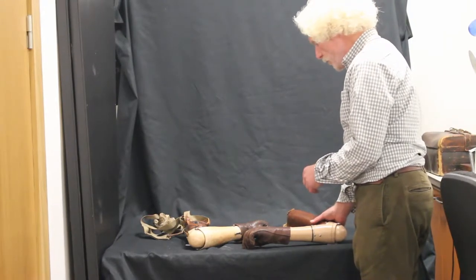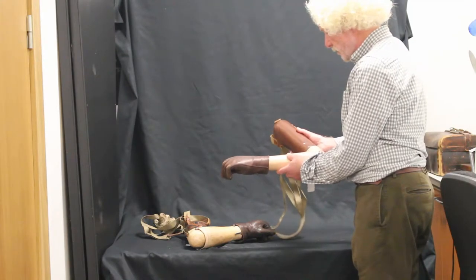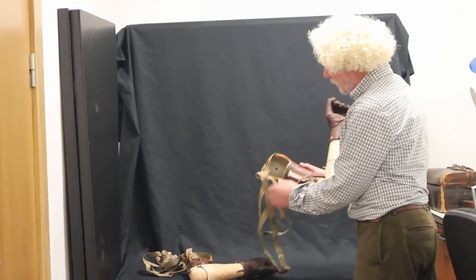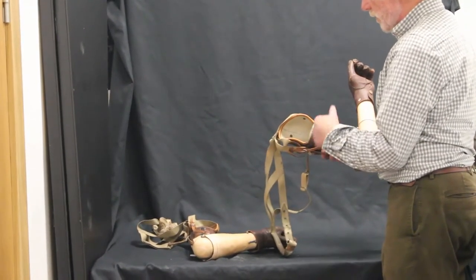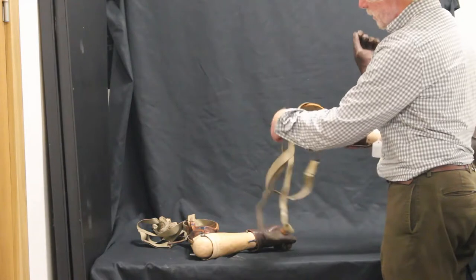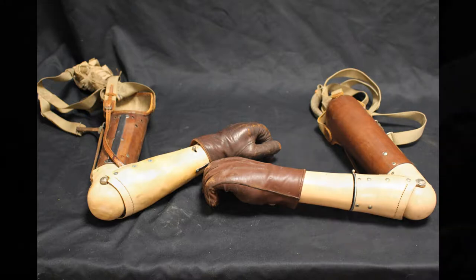From the patient's grandson we know the limbs were hardly worn because they were so awkward, and the patient would much rather just get on as he was. We can see here where this piece would be fitted via the shoulder — there was a short stump that would fit in here, so it was probably an above-elbow amputation. Shoulder strapping would go over the other arm, over the back, and one piece across the chest to take the weight of the limb.